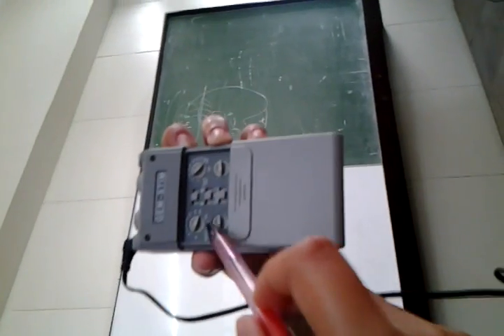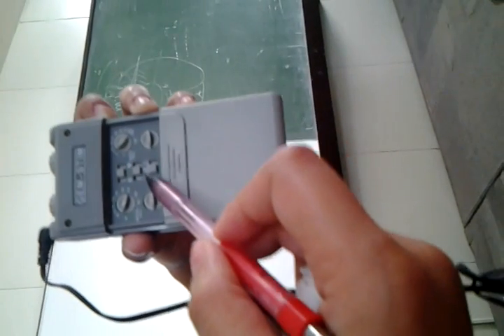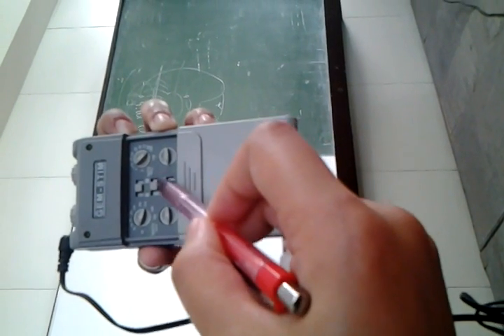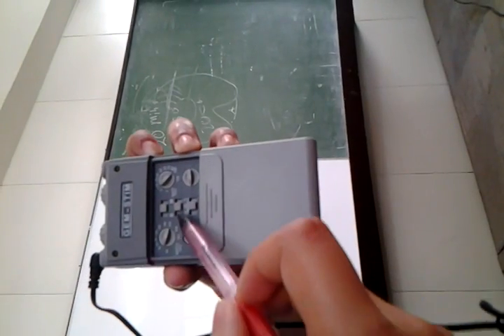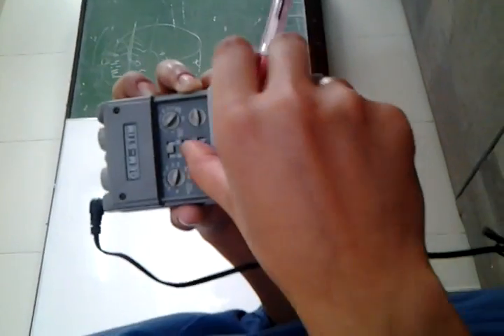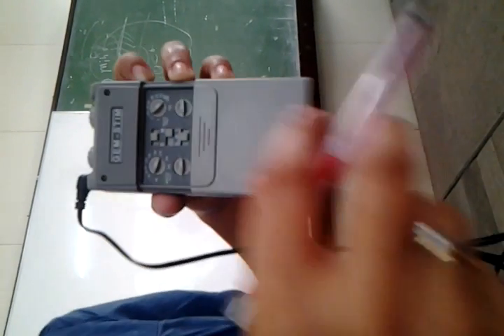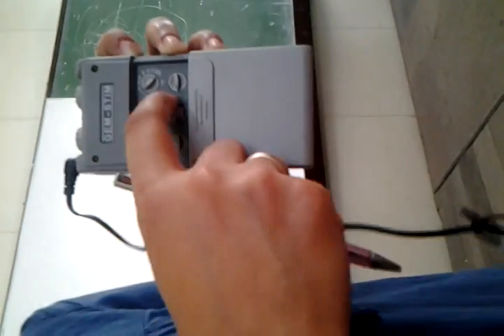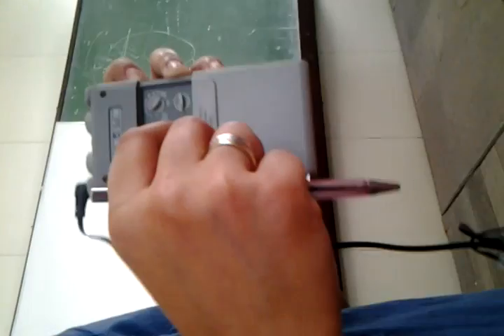Okay? And then below, you have the time, which is in minutes. You have 30 minutes, 60 minutes, and you have C. C is for continuous. So for example, if your treatment time is between 30 and 60, or more than 60, you can switch that to C, then you will manually time your treatment. But if it would last for 30 minutes, then just go to 30. If it is for 1 hour, then you will have 60 minutes.